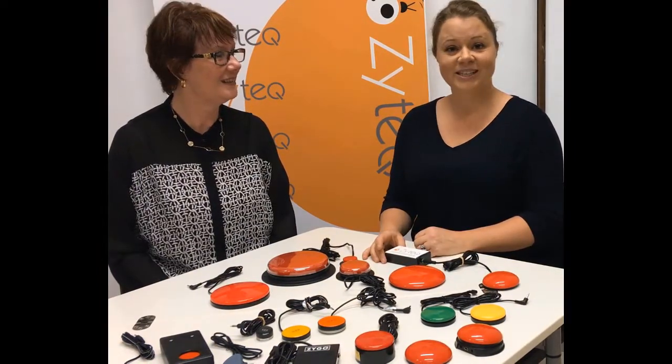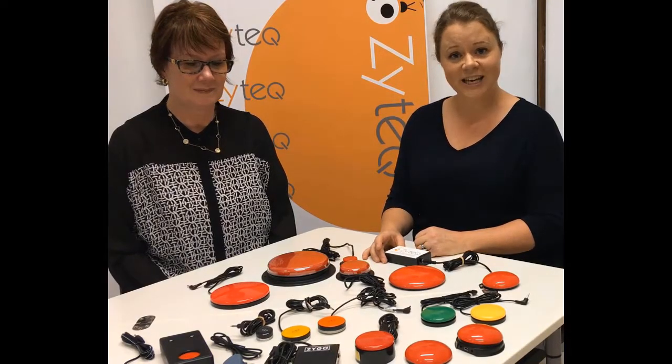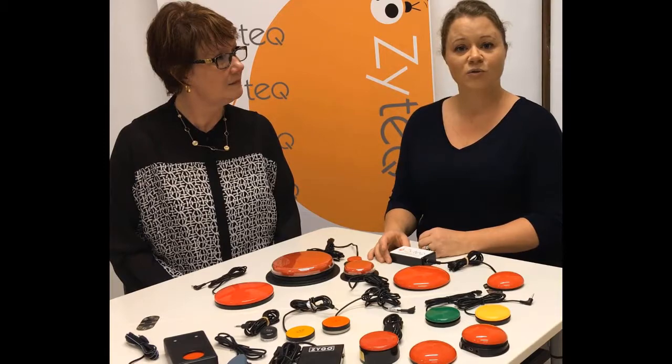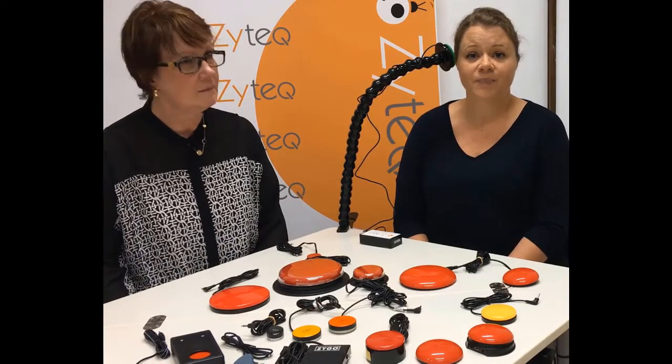It's important to find a switch that is easy to use, consistent, reliable, and not fatiguing. Work with your client to find the best movement that allows them to activate the switch. This is called your switch site. The switch site could be any part of the body. Once you've chosen the best site for the switch to be activated, you then choose the switch that matches that movement. For example, this is head activation of a switch. This is a good example of knee activation of a switch.